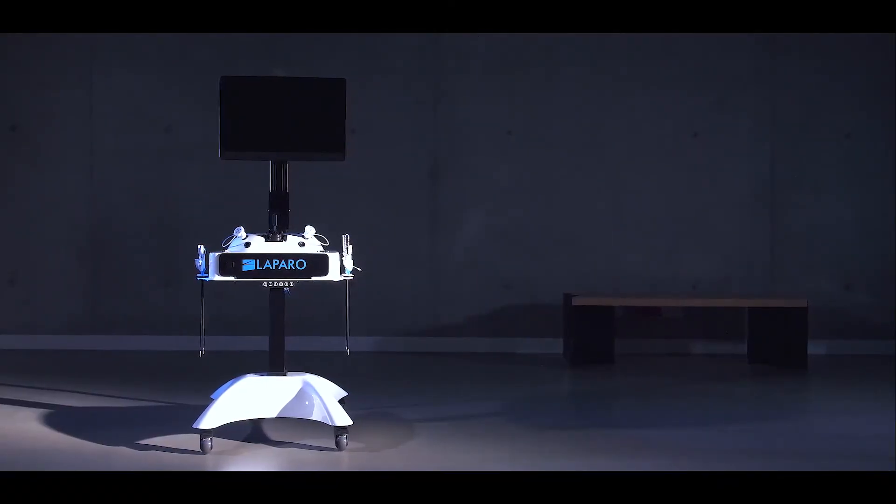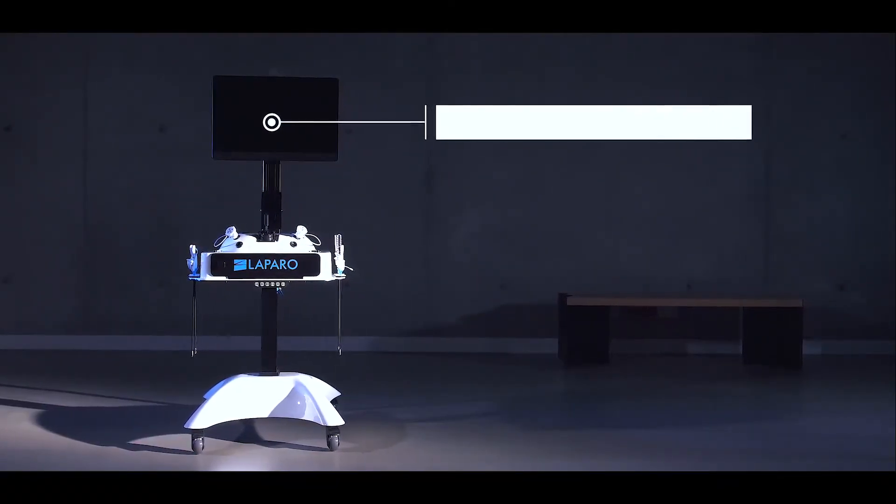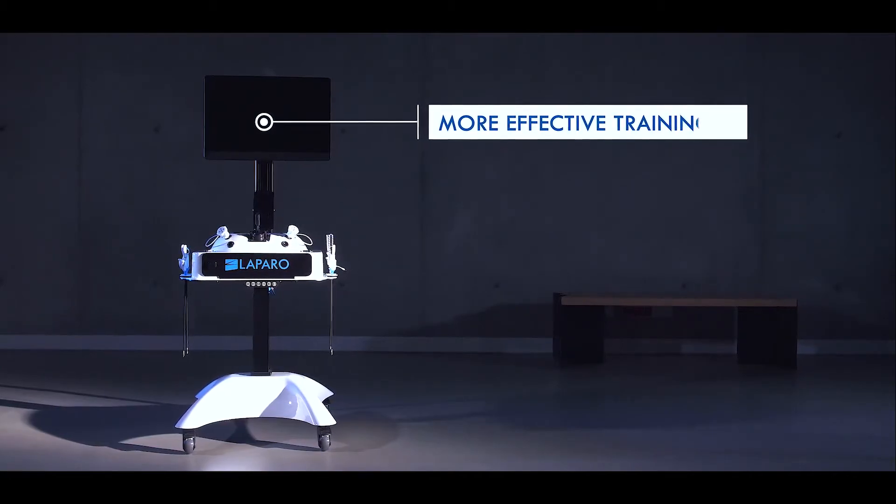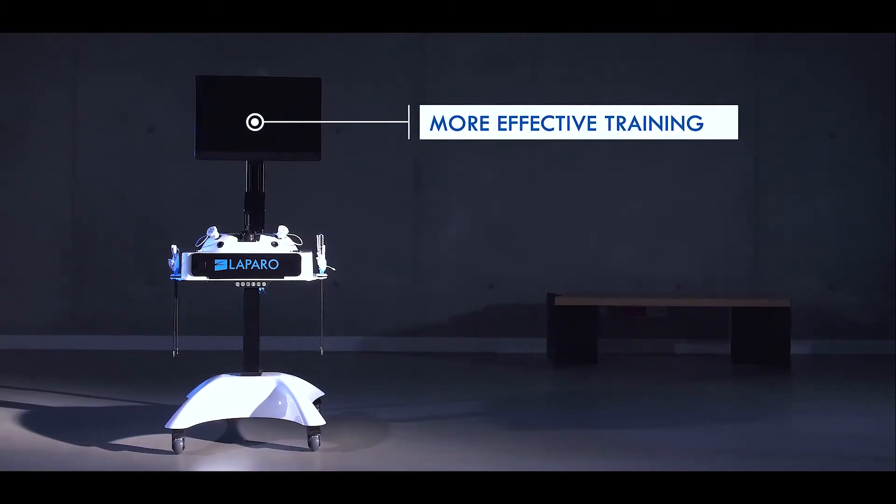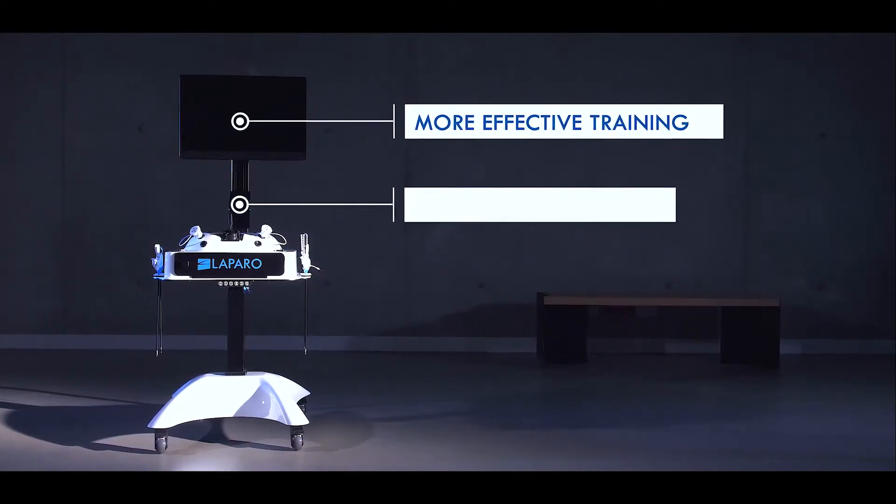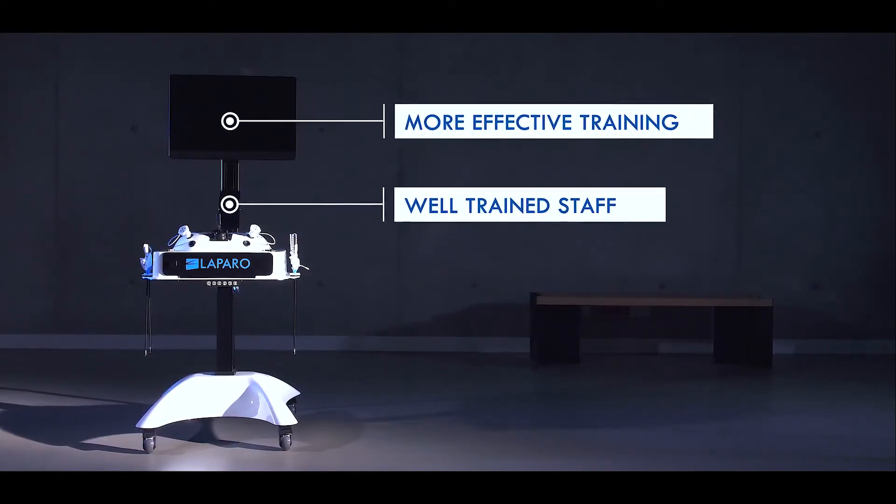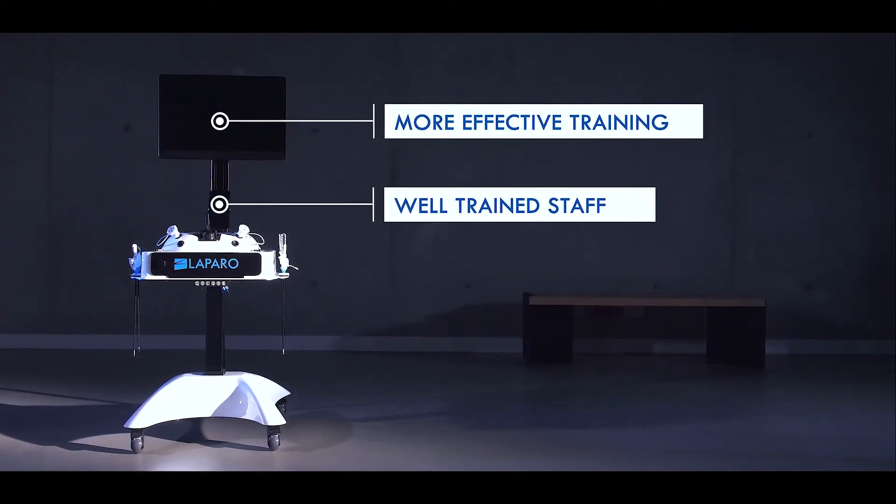LaparoAnalytic will bring many benefits to your institution. Thanks to the automatic training evaluation functionality, the learning curve will be much shorter and group workshops will be much more time efficient. Well-trained staff will be able to continuously improve their skills.